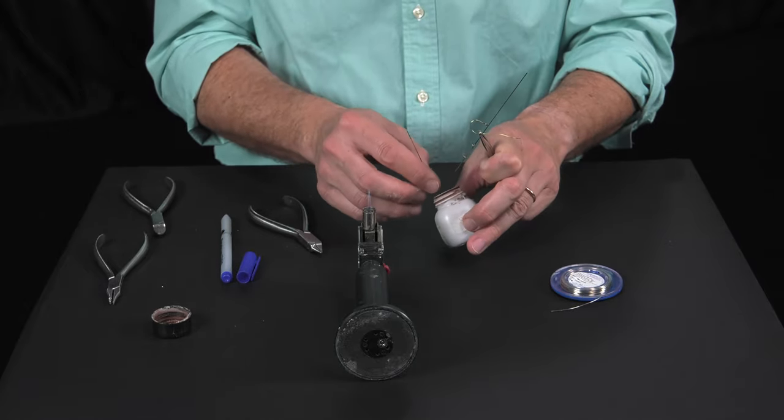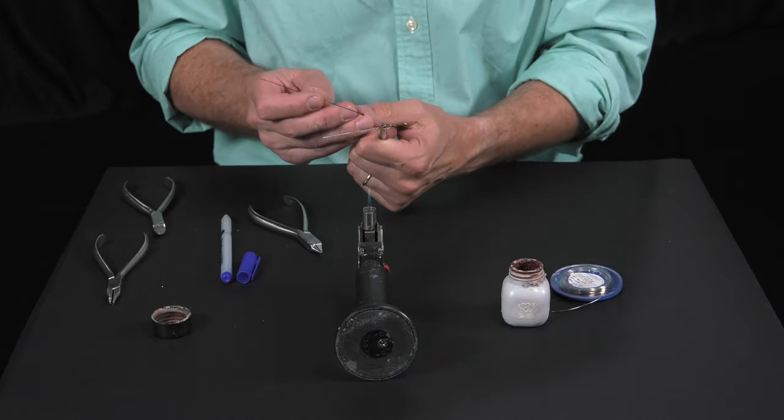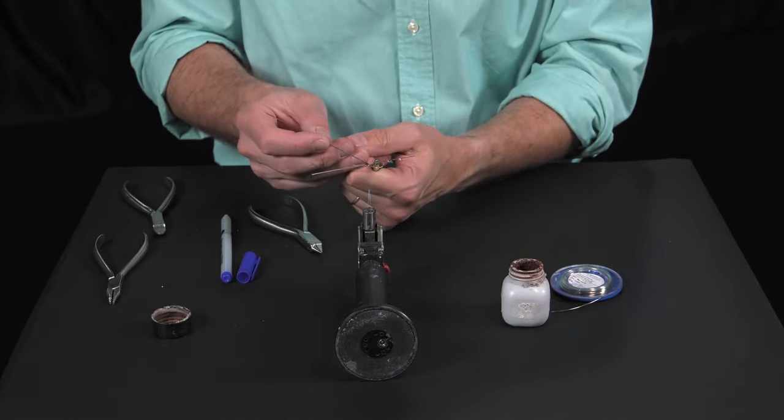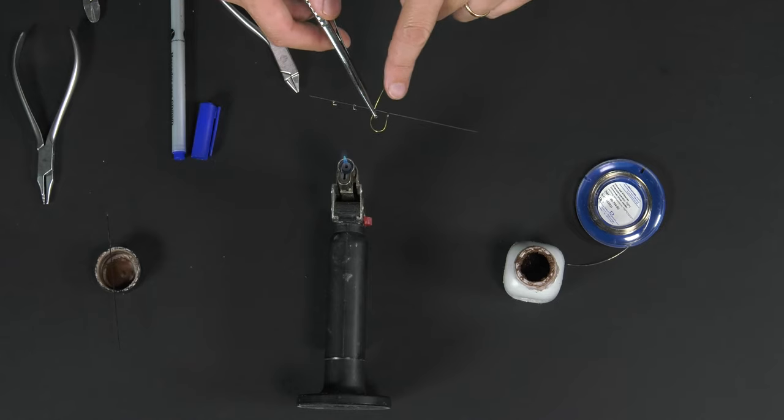Then, we dip in flux the silver solder and the wire at the point where we want the silver solder to stabilize the section.